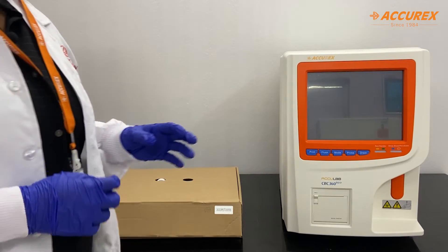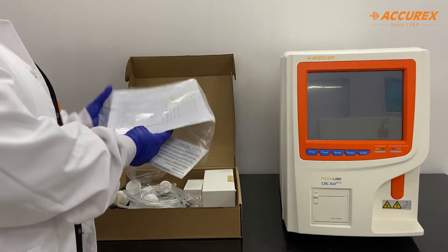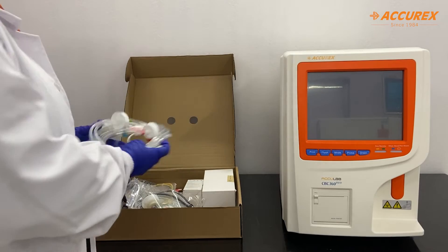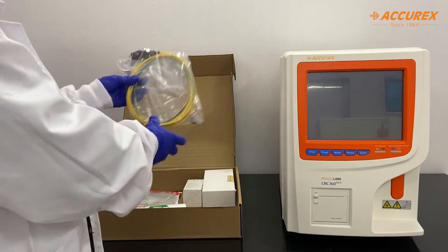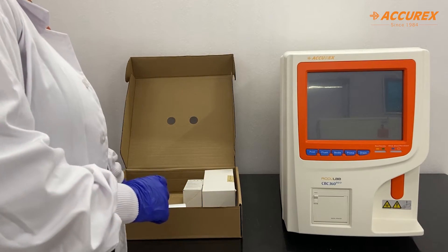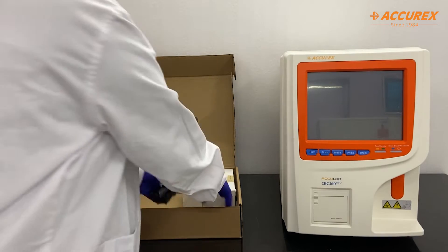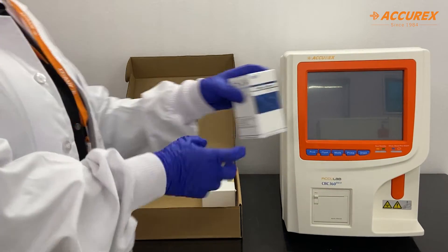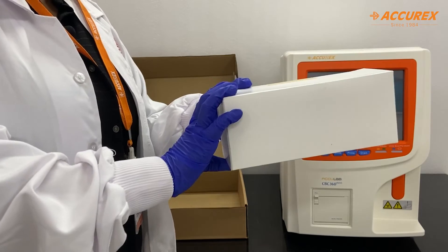This is the main unit and now I will tell you about the accessories that come with this analyzer. With this you get all the certificates, installation reports, and warranty cards. There are reagent tubes, a waste tube, one power cord, one ground cord, one RS232 cable, one grease, a 32 µL probe, two printer paper rolls, a seal ring, a probe cleaner for cleaning the probes, and disposable plastic tubes to collect samples.